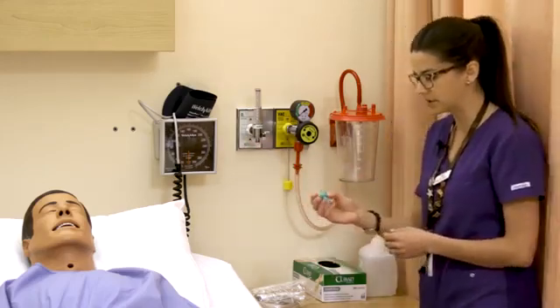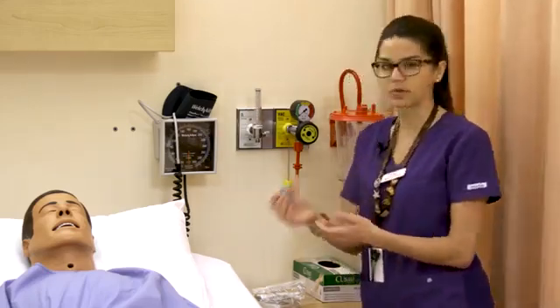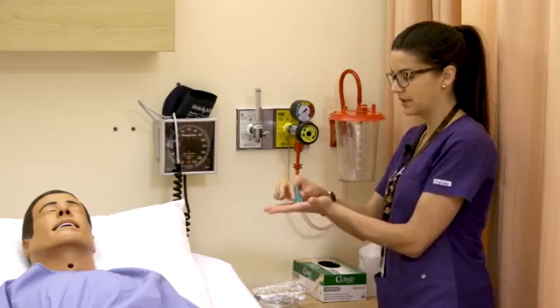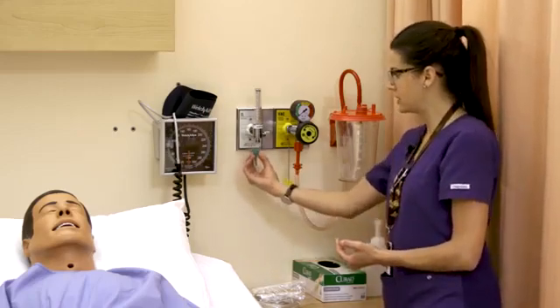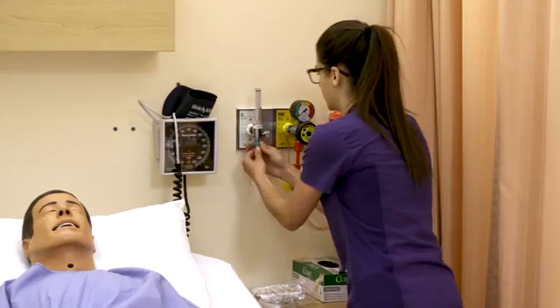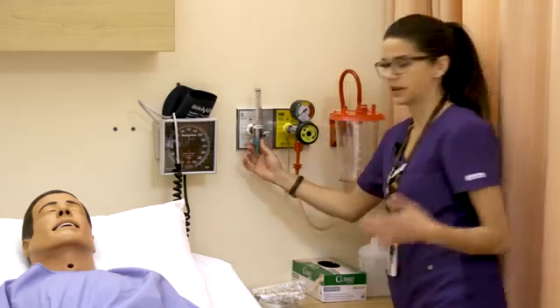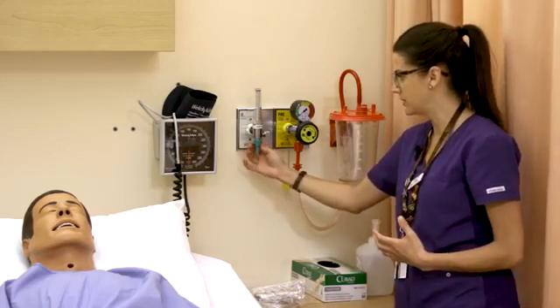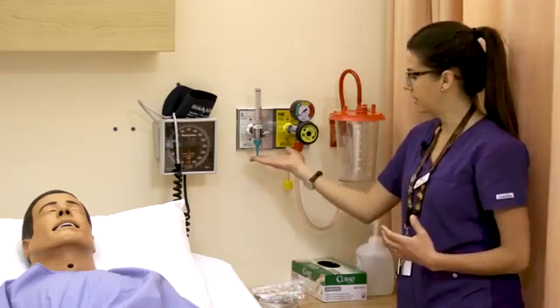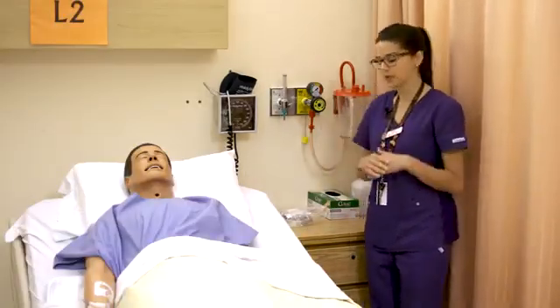This as-is won't connect to a lot of different types of oxygen tubing, so you need this essential piece called an adapter — sometimes called a Christmas tree because it is often green, though there are white ones too. Oxygen adapter is the better term, but it's sort of shaped like a little Christmas tree. It connects onto the bottom of your flow meter in a screw-on method. You want to make sure it's nice and tight — not so tight that someone can't get it off, but secure. This is where we connect many different types of oxygen tubing, and we'll start with the least and work our way up.